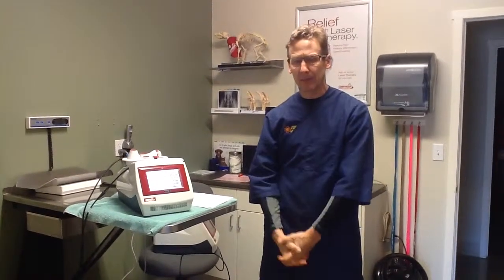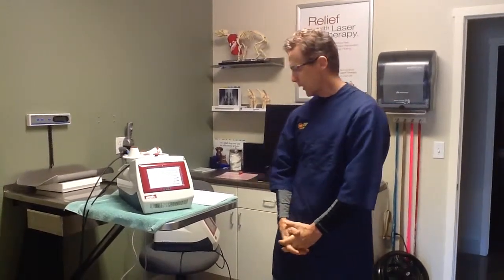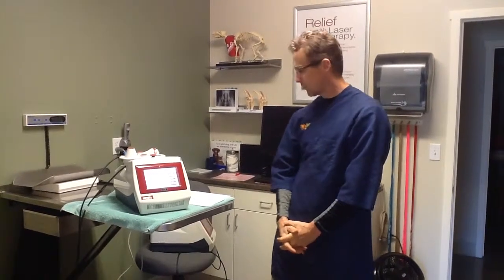With your iPad, use all three functions: the laser liaison — I use mostly the staff training tab — and then iBooks and the iPhoto and camera function on the iPad as well. Those are the take-home messages. You should have all these things explained more fully in the earlier videos. Thank you.